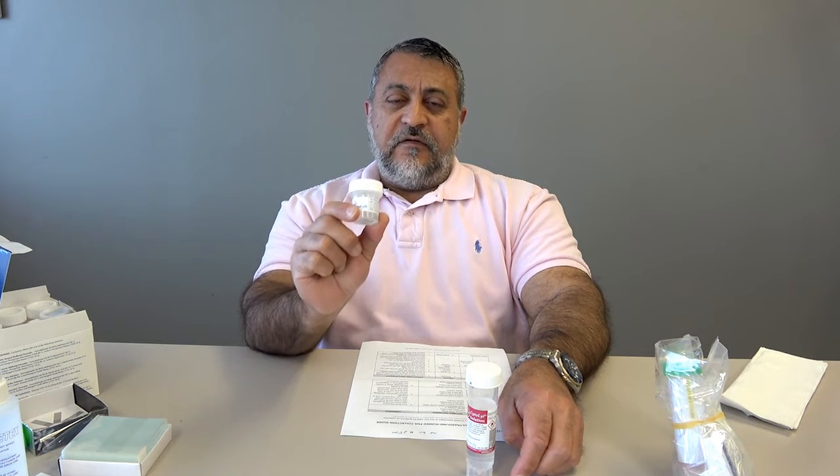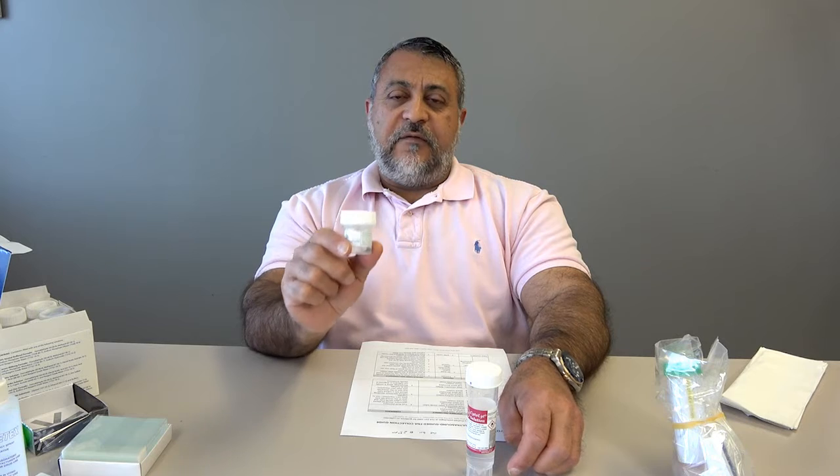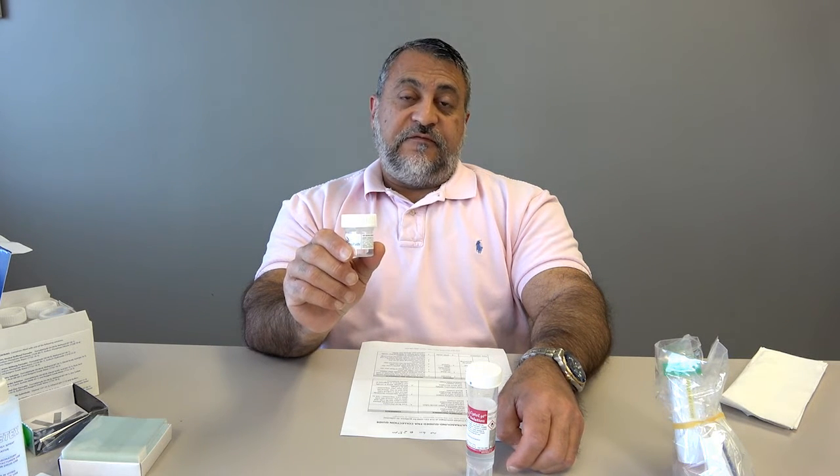This is formalin. We use this to make a cell block. And this is the key. We want to make sure we have good cell block material because the cell block material essentially becomes like a small biopsy. So with this material that's formalin fixed, I can do routine histology with an H&E, which is very useful. And then on top of that, I can do immunostains to phenotype a tumor if that's what we find. I can also do immunostains that are useful for ancillary studies, for example, maybe for treatment, finding out if a certain drug will work on a tumor. And in addition to that, I can use this to do molecular studies and FISH studies. So this is golden right here.